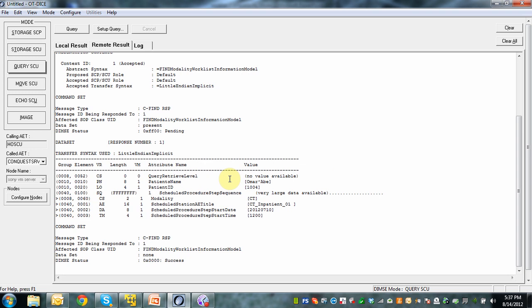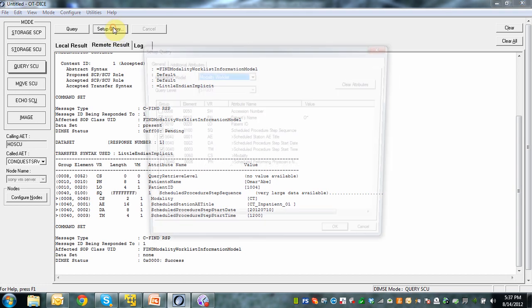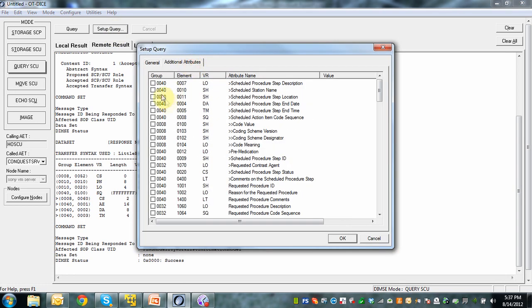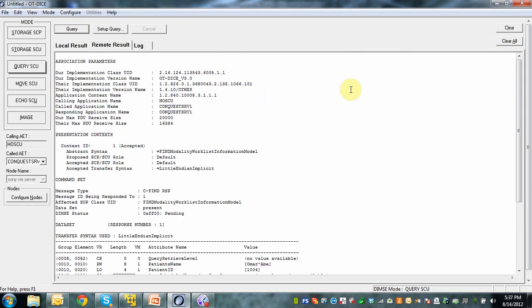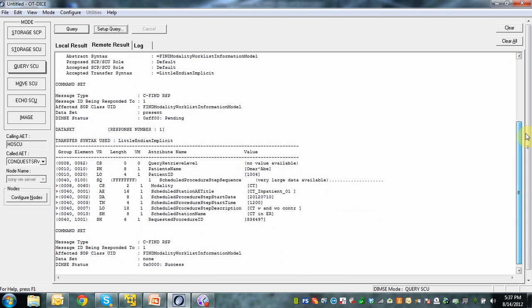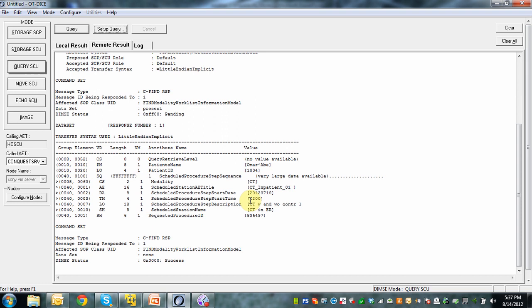You can play with it. In this case we have only the patient name, ID, modality, AE title, date, and time. But we can change this — we can find out whether my worklist provider also provides the station name, the description, the procedure ID, reason, and maybe some comments. If you click on all of those and do the same query, you find out that you get everything back that you asked for: start date, start time, description, name, and requested procedure ID. You can find out exactly the behavior of your modality worklist provider — it's a pretty powerful tool. You can add any patients you want and select any attributes on your modality simulator.